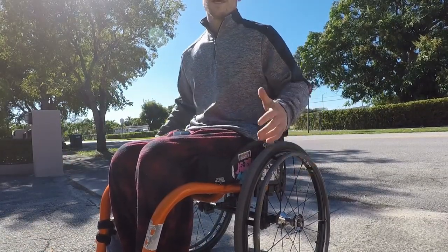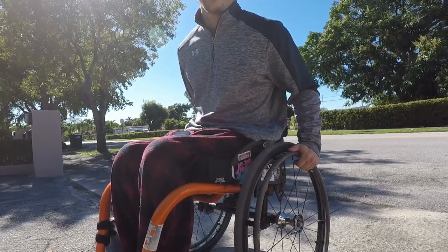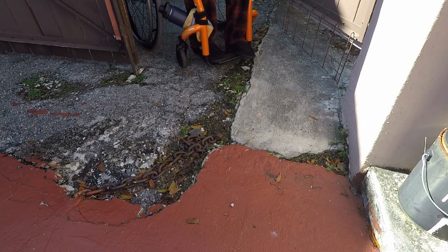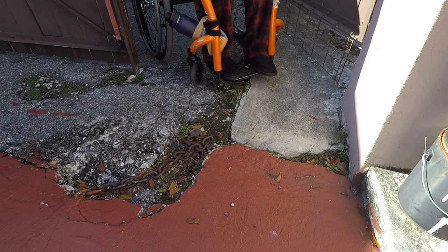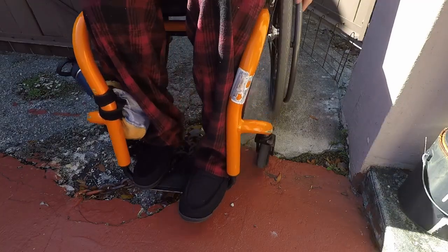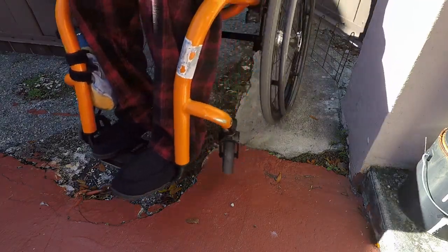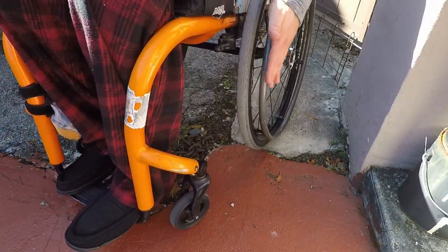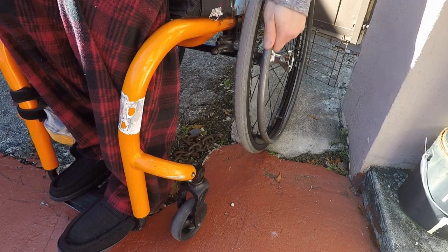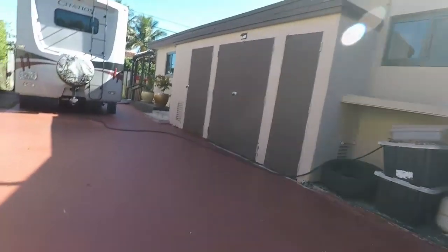Maybe you don't want to be too 'toppy' — I don't know what the proper term is — but even small things like that help. This is the entrance to my house, how I come inside. Not in a wheelie, look how awkward that is — I have to rock the chair just to get it up. It's a pain without the wheelie. But if I come in fast, since this wheel is big, rocks and little obstacles won't stop me as long as my hands are out here to stabilize and steer — I'll be perfectly fine.